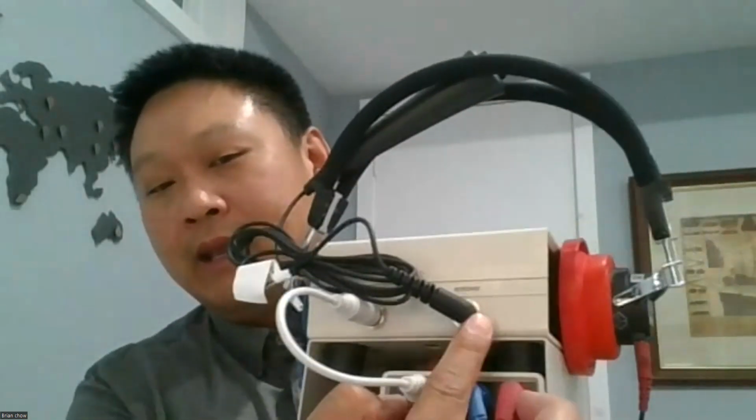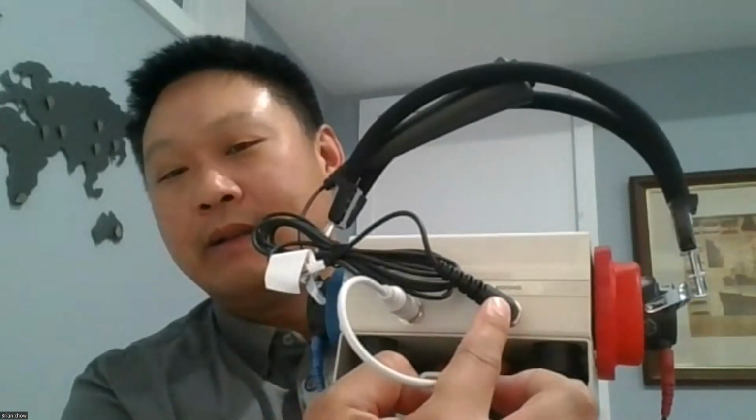But having said that, prior to us getting the equipment ready, we need to make sure that the patient response button is plugged back in. It's likely that you just finished the daily calibration. So once that's plugged in, we can get into starting a test.